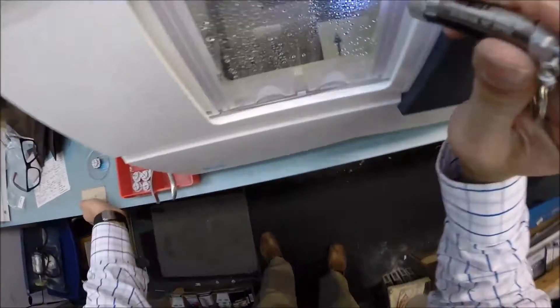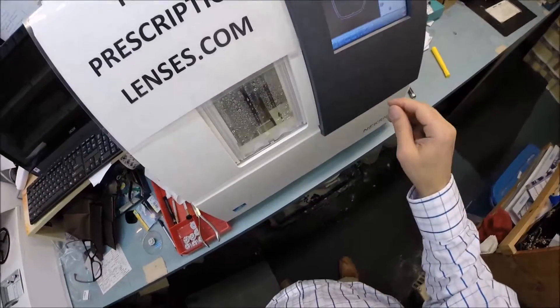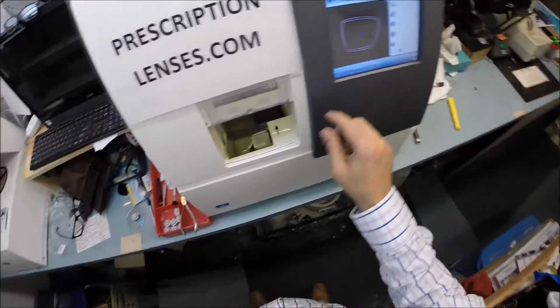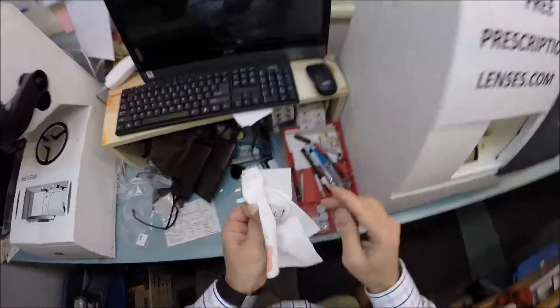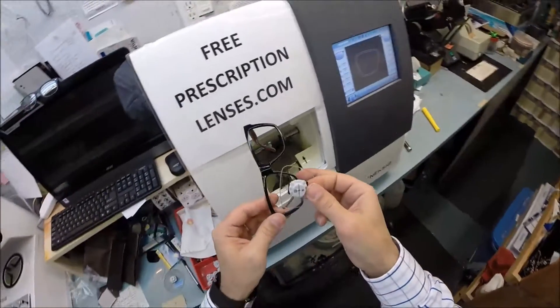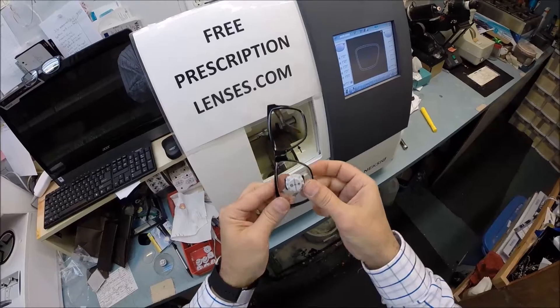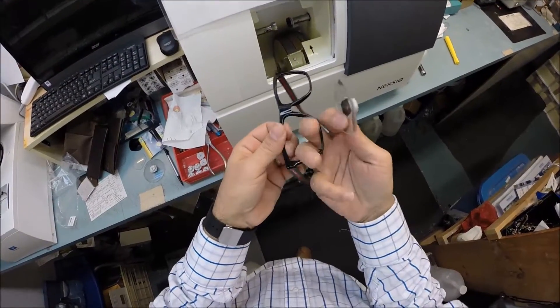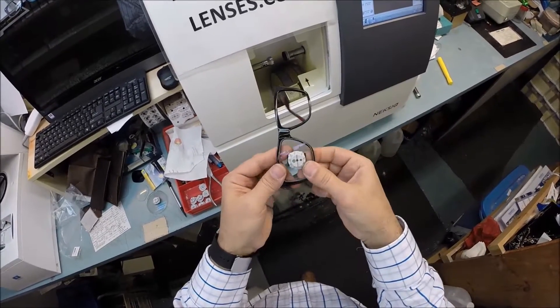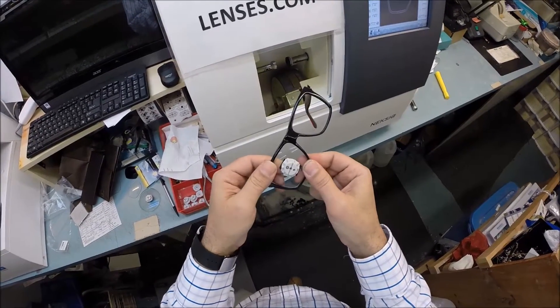So in just a moment, the door is going to open and we'll check to see the size. Because I also need to demonstrate one more thing for you. Now you decided to get the combo, so you're getting the sunglasses and the clear lenses at the same time. But again, here's how you mount either lenses that you get. I'm just going to clean off the schwarf that was on the edge of your lens. You tuck the lens in at the outside corner. You hold the frame upright. I've got my elbows at my sides, arms at a right angle. The frame is perpendicular to me. I'm working on the closed side, the empty side. I'm not trying to reach across. But you tuck the lens in at the outside corner, which is closest to your chest, and then using your thumbs, you press down at the nose and it snaps right in.